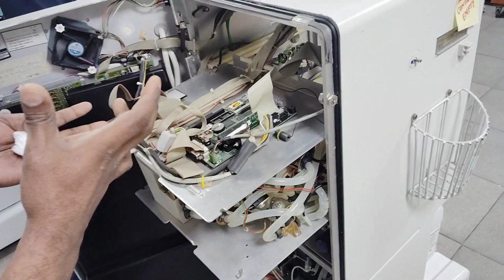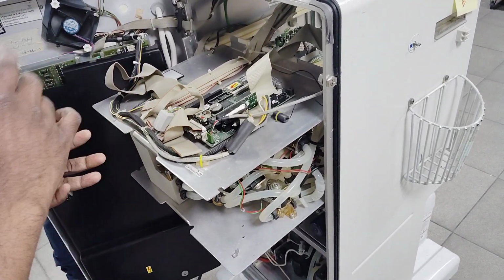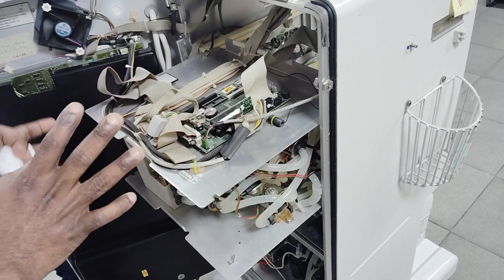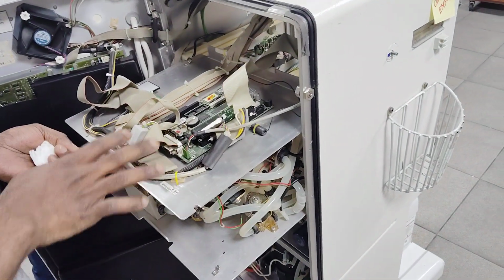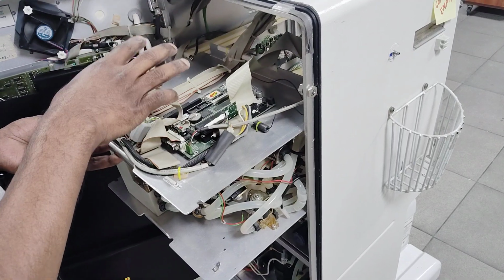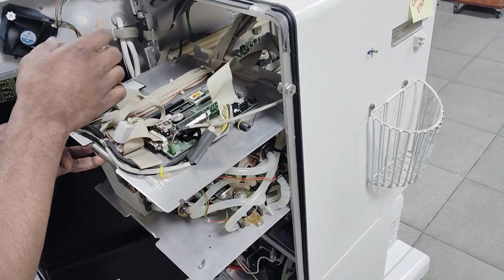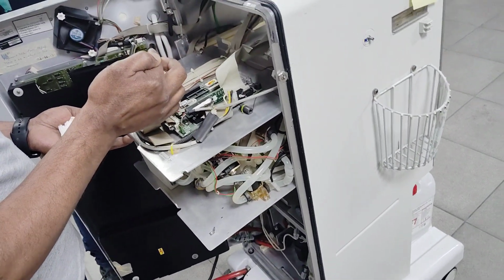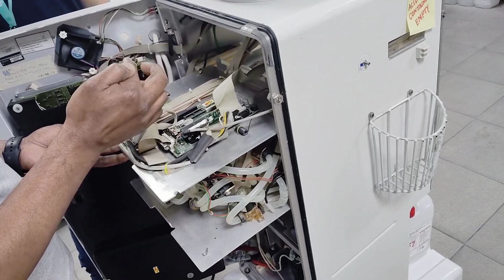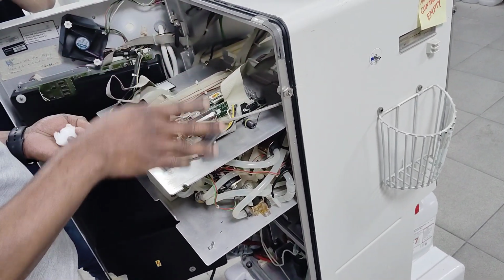This is a Linux program system, not an OS system with a command prompt. In the past we used to have a floppy drive, and we installed the software through floppy only. So what is the software, like the OS? Linux. Yes, Linux is our system. We will show you the system inside later.